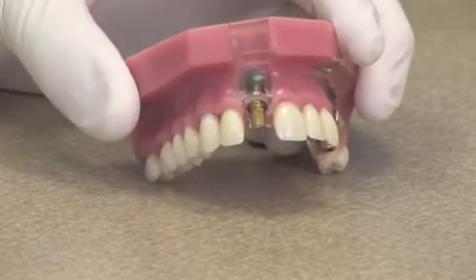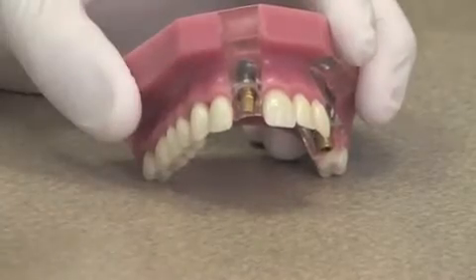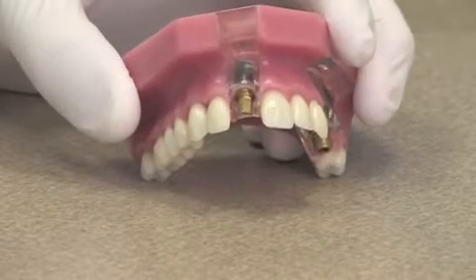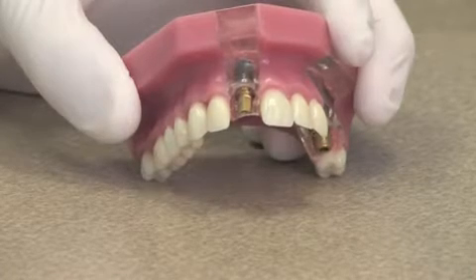This is going to demonstrate a dental implant. When someone's missing a tooth, what can be placed is an implant. An implant is like an artificial root. You can notice it looks kind of like a screw. That's where the root used to be. So this is the artificial root, and it goes up into the jaw underneath the gum line.